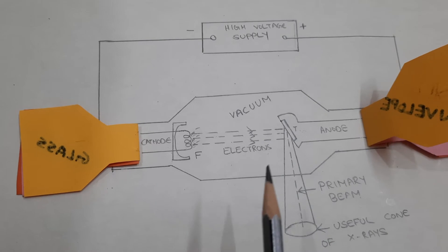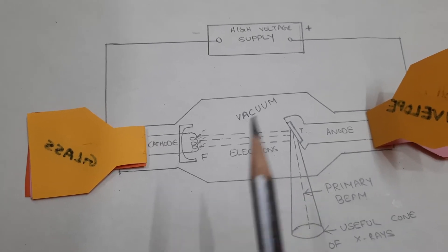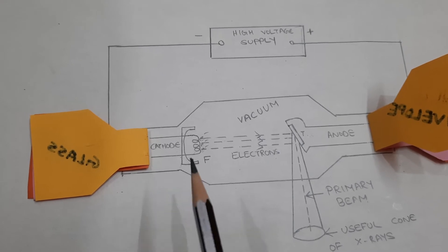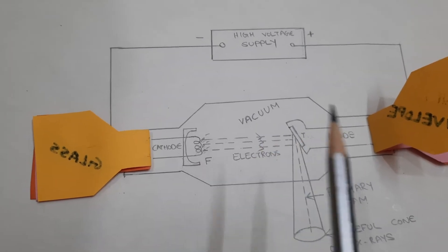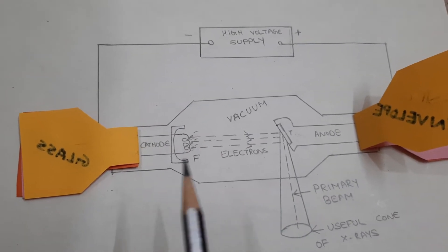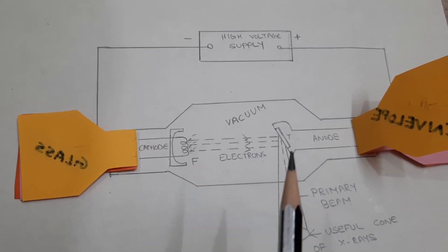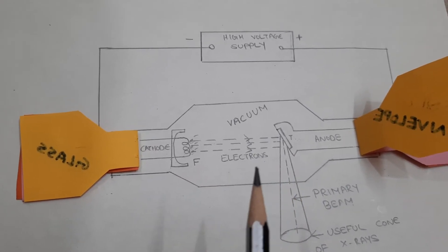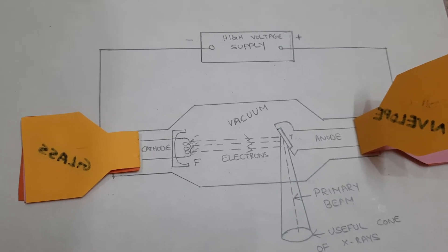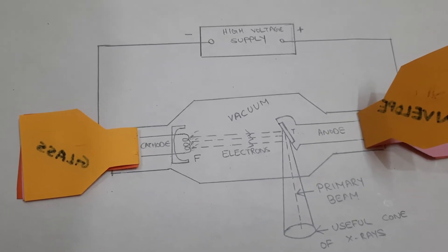These are the parts found inside the x-ray tube. We will now learn in detail about the cathode, anode, focusing cup, filters, collimators, and all equipment associated with the x-ray tube.